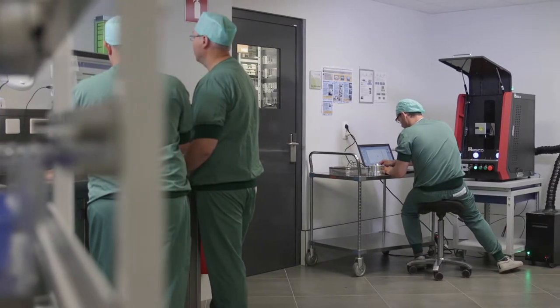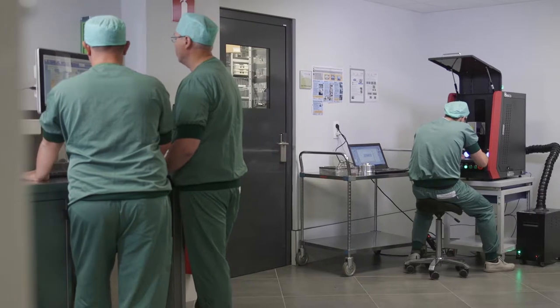The compact workstation is designed for benchtop operation. Minimal workspace is needed.